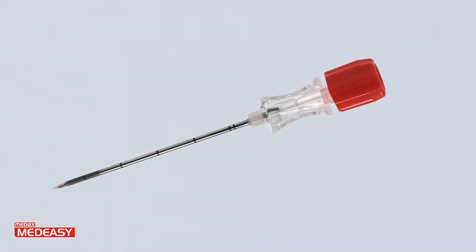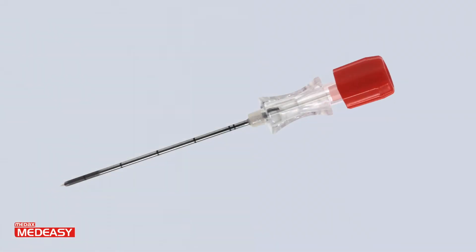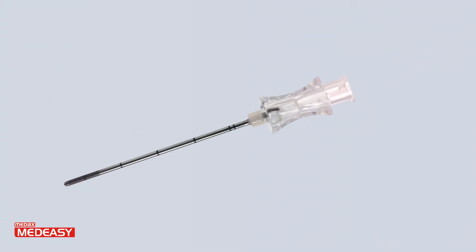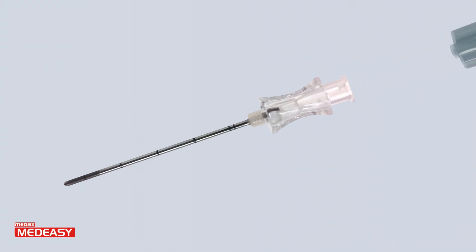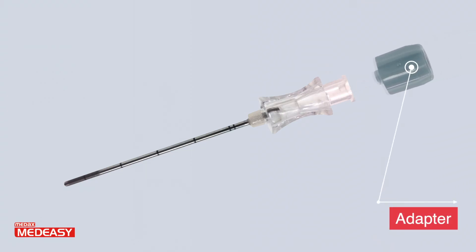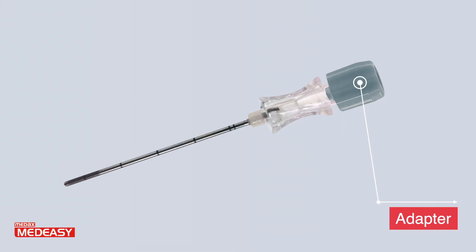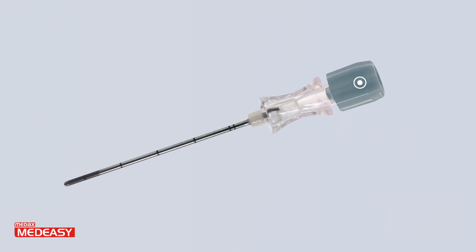If MedEasy penetration depth is set at 10 millimeters, connect the adapter with the coaxial cannula and introduce the loaded device.